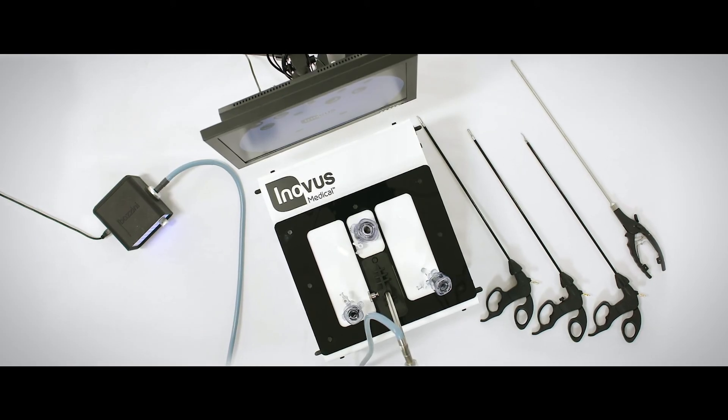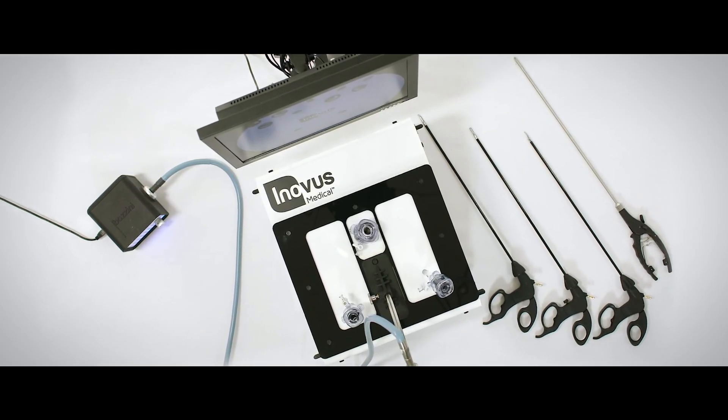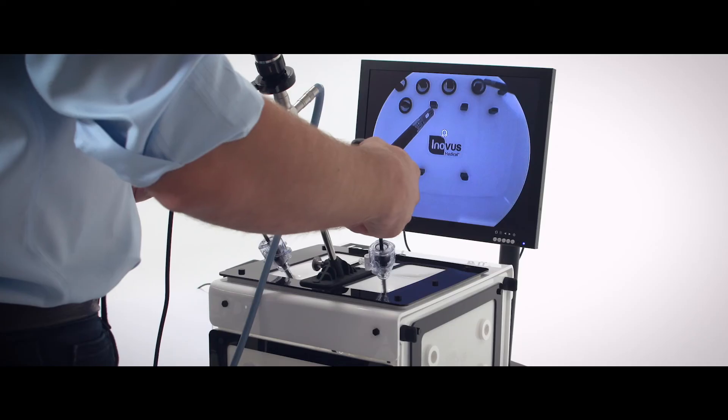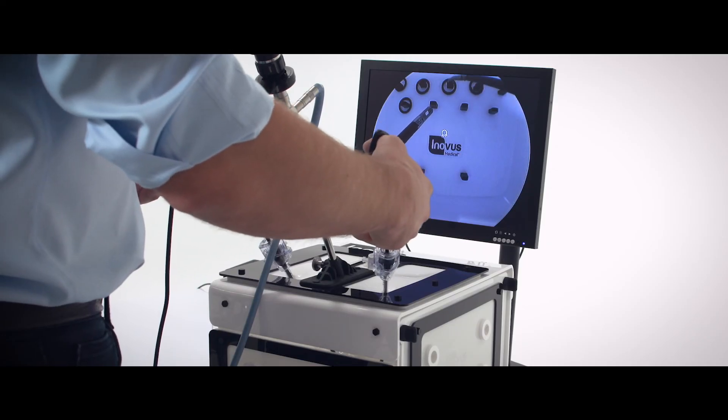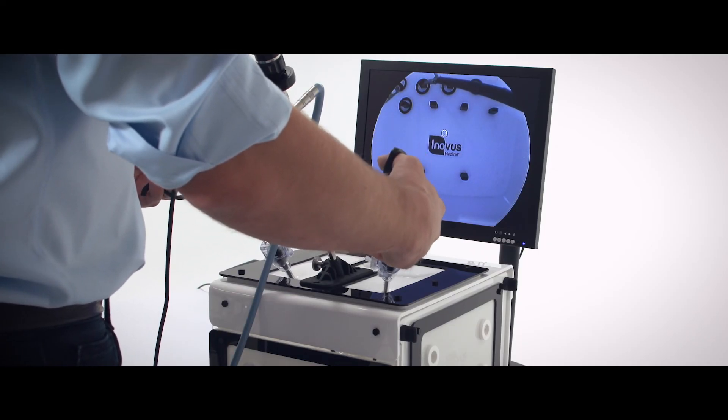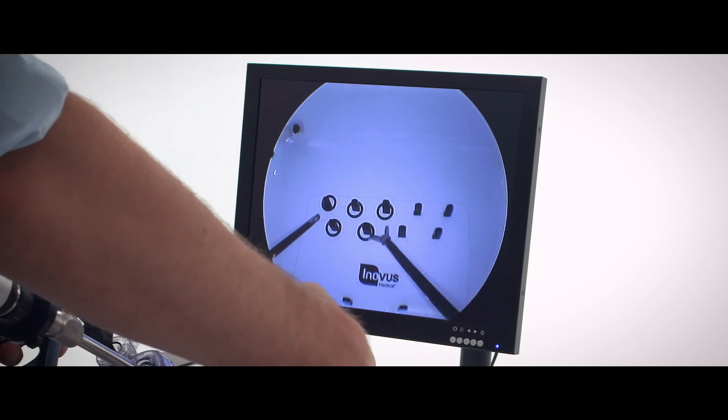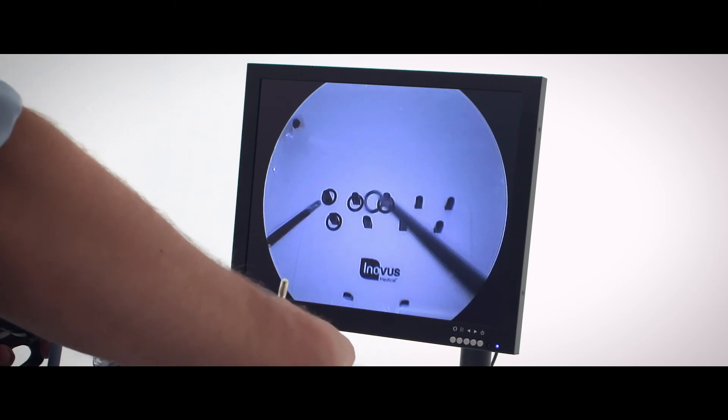The Box Trainer supplied allows for basic, intermediate and advanced laparoscopic skills training. The Box itself can be replaced by cadaver models or other anatomical models to allow extremely close to life, high fidelity laparoscopic simulation.